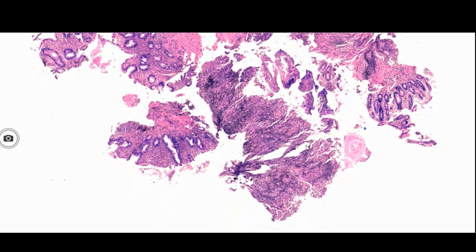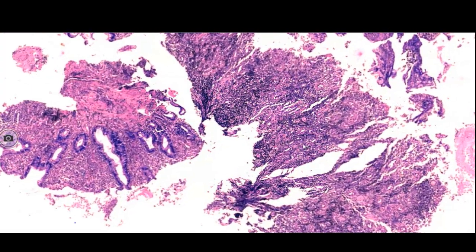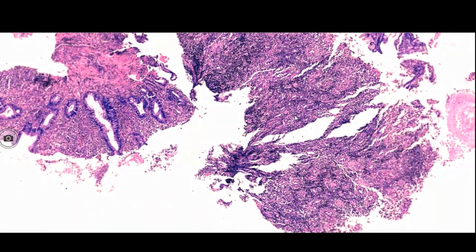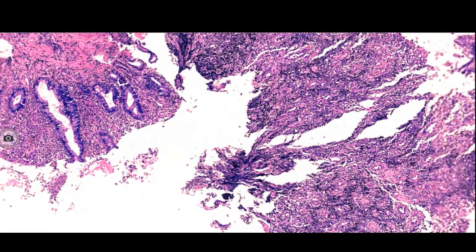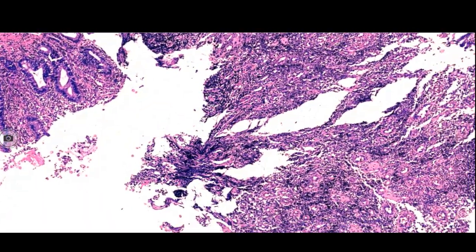Here is the microscopy of the case. I shall be discussing the microscopy during the discussion session tomorrow.